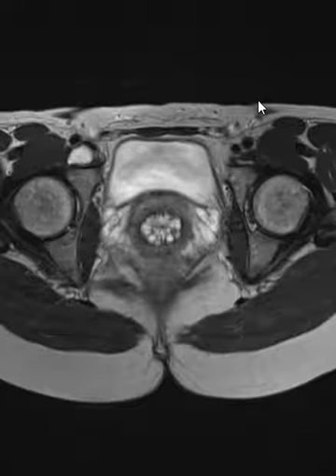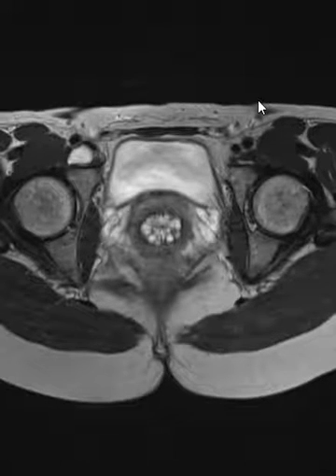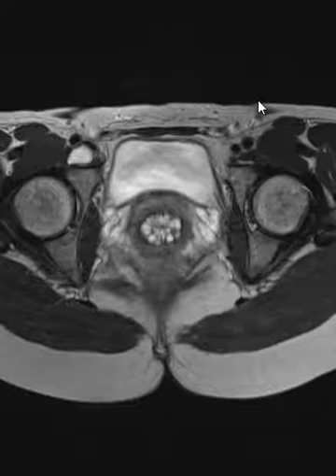Hello, this is Dr. Gay from First Lake MRI, and this is a middle-aged female who had pain in their left gluteal region.